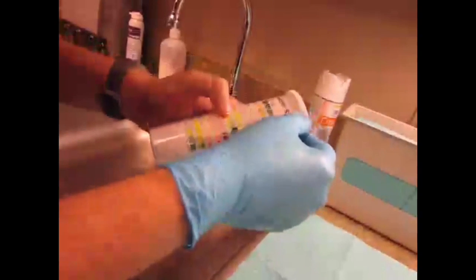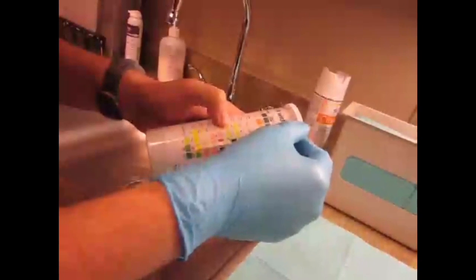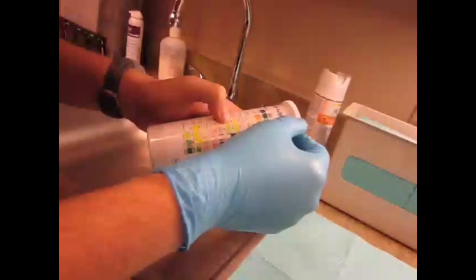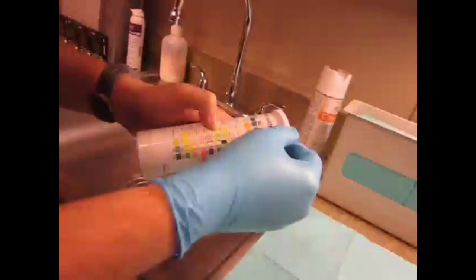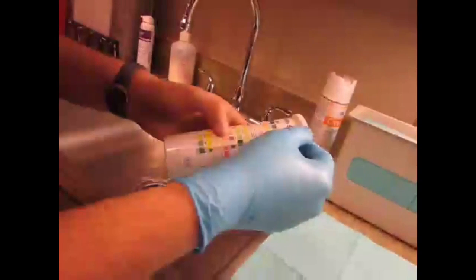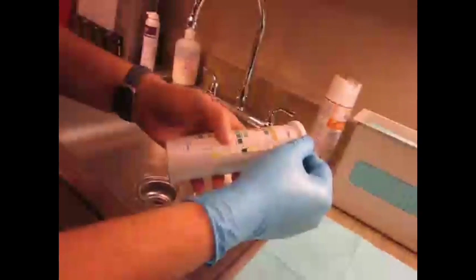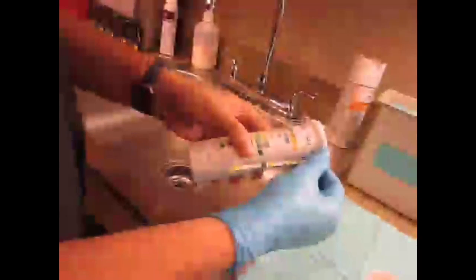Proteins, that's going to be kidney damage usually caused by high blood pressure, maybe diabetes. The kidneys should be filtering out all these large proteins, so if they're coming into the urine, you know that there's something going wrong with the filtering. The next one's glucose. Now he's testing high for glucose, about 1,000 milligrams per deciliter. So that means that he's got diabetes, if you get glucose in the urine that's this high.